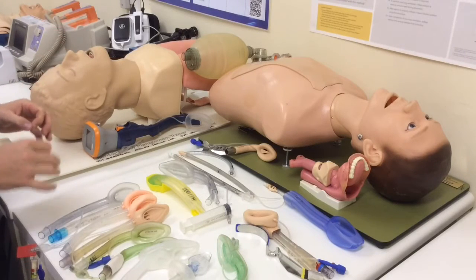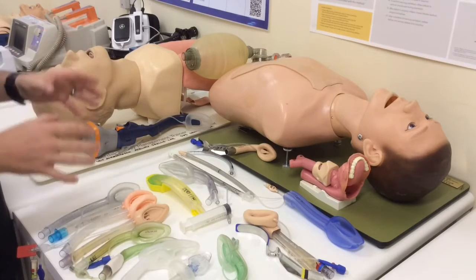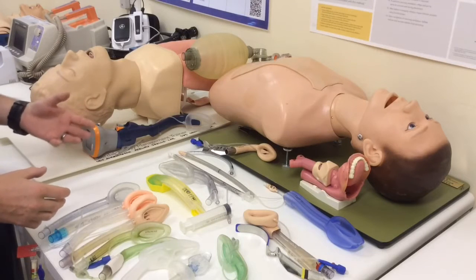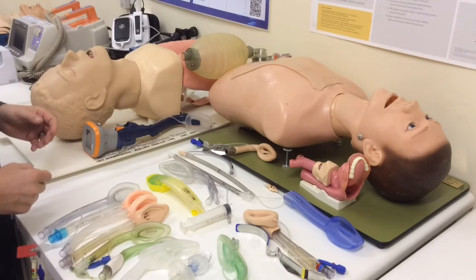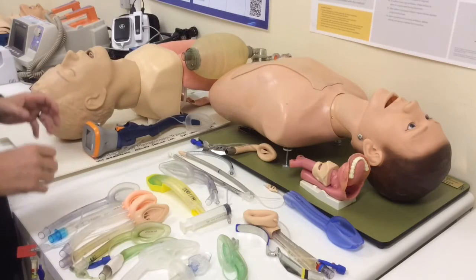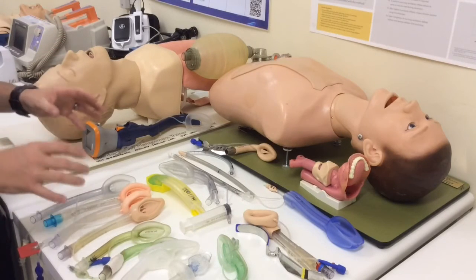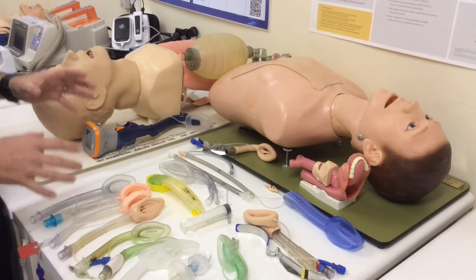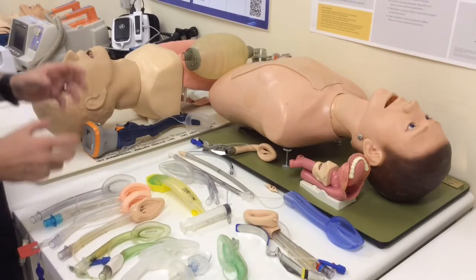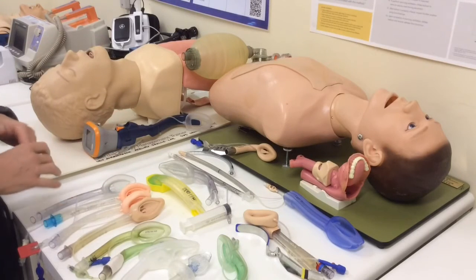We're recognizing more and more now that in an emergency setting, so either for obtaining an airway as a primary intervention, let's say during a resuscitation with ongoing CPR, or where the skills for intubation don't exist, where the access to the patient is limited, then placing a supraglottic as your primary airway intervention may be a good idea. And also we recognize that these devices are excellent for rescuing a failed intubation situation. We know that where intubation has failed in an unanticipated difficult airway, we can 9 times or more out of 10 rescue that situation by placing a supraglottic.